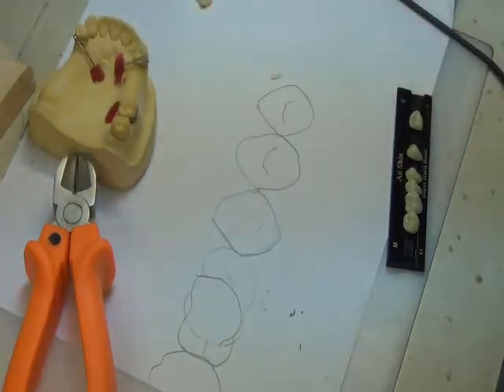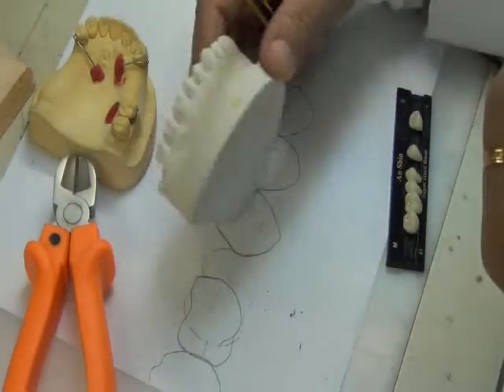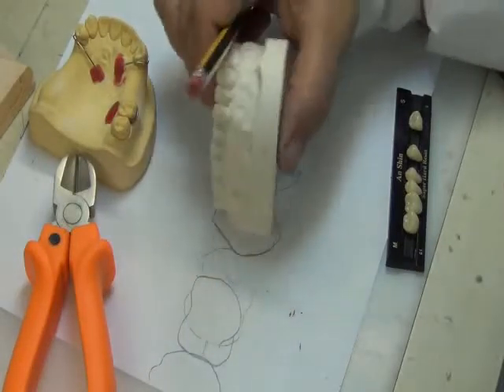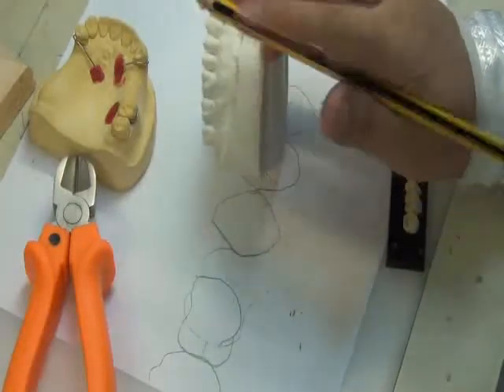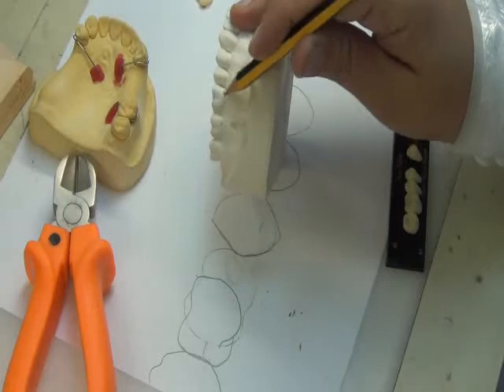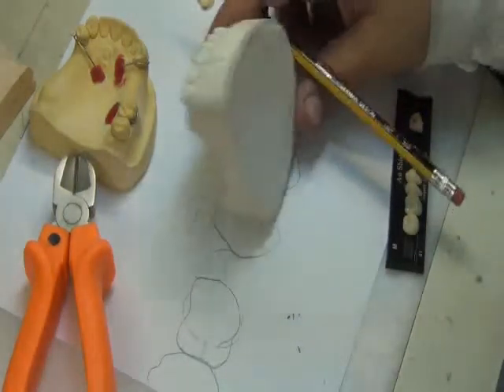And also regarding the size of the teeth, remember that I'm also using the gingival occlusal dimension of the cast as a guide. So if I'm looking at this cast, for example, notice that the distance between the gingiva and the occlusal table is large. I cannot use the following tooth to replace this.